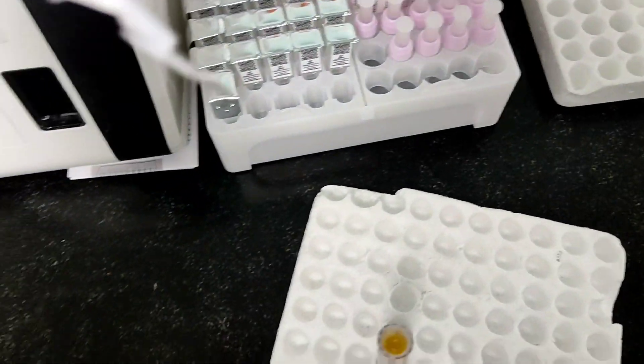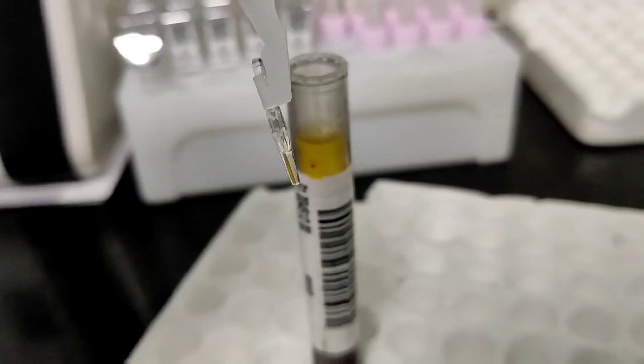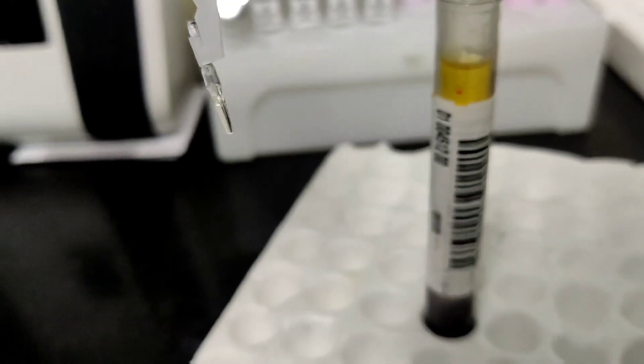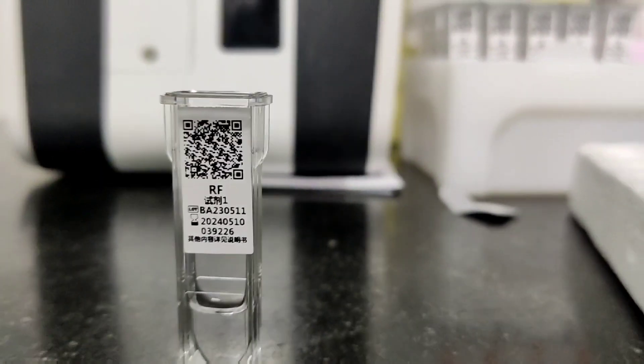Firstly we scan the barcode of the sample. Then we have a sample collector and ammonium chloride buffer in our kit. Required volume of sample is aspirated by capillary, after which we have to insert it into the cuvette containing buffer.